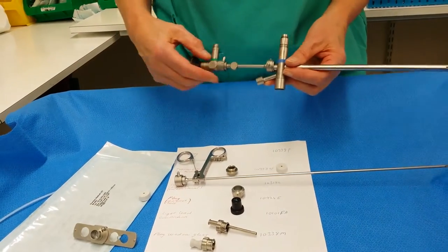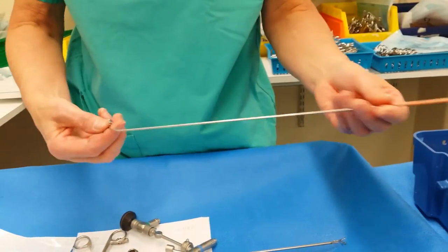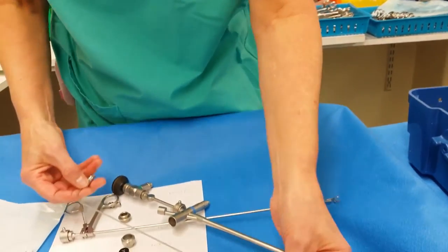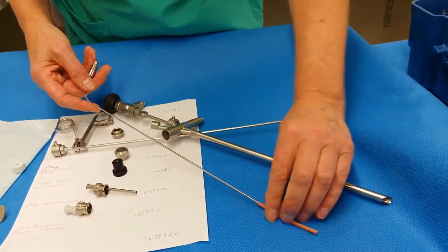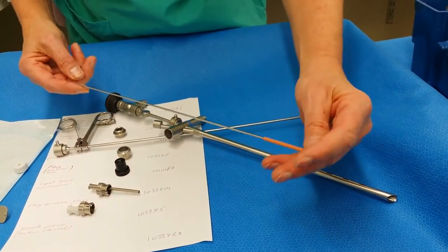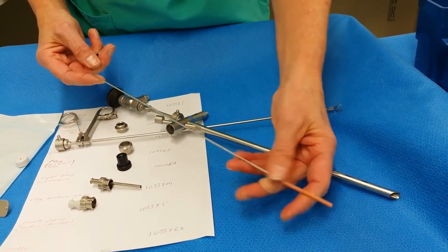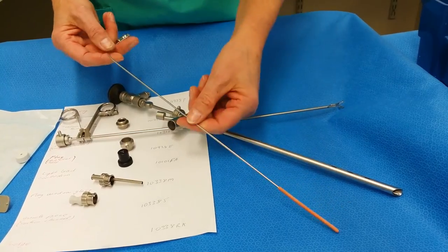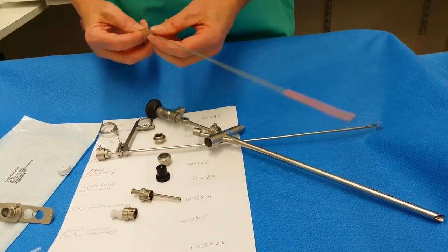You've also got the rigid suction that's got a flexible end. You need to make sure that the rubber is of good enough quality so it doesn't break off because it's old and stay behind. Make sure you bring it out again that it has got that on the end.